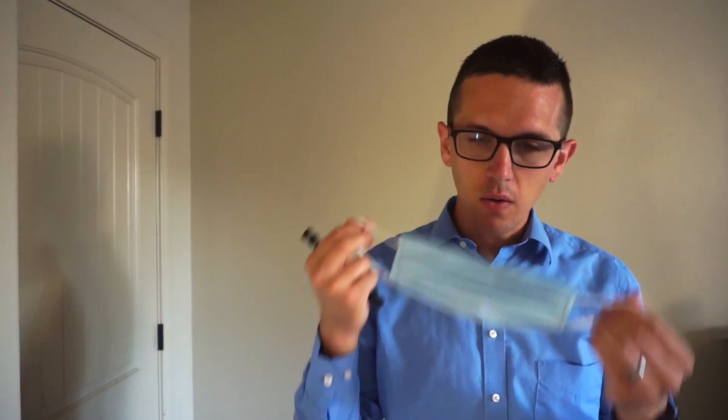I have here just a typical mask, and usually this is going to sit over your ears like this, which in the short term is not a problem. But if it's on for a long time, it starts to be a strain on the back of your ears.